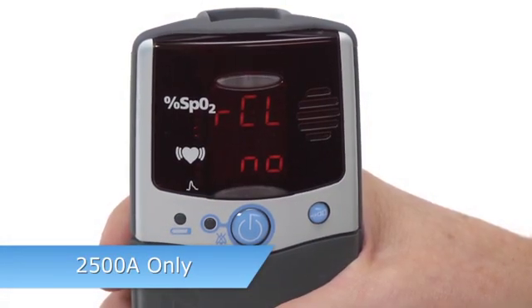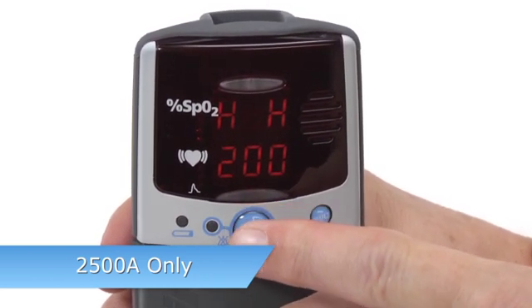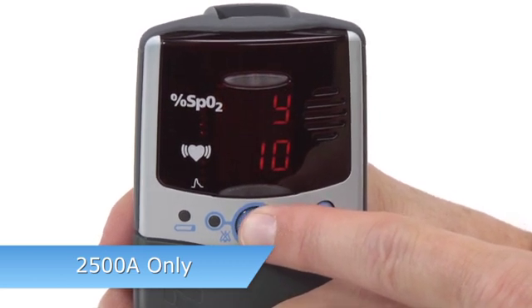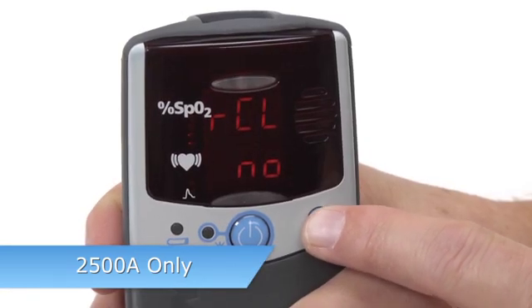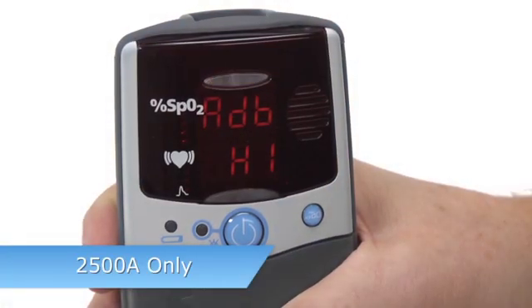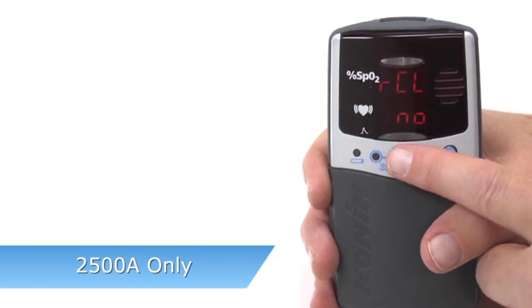For the 2500A model, when you enter setup, the Recall Alarm Values No option appears first. Memory clear, date and time settings follow after alarm settings. If you clear the custom alarm setting, the oximeter will return to its default settings. Press On-Off to clear the custom alarm settings, or use Advance to select Yes to retain the custom settings. If you retain the settings, you will automatically exit setup mode. If you clear custom alarm settings, you can scroll through and reset all values on the oximeter.